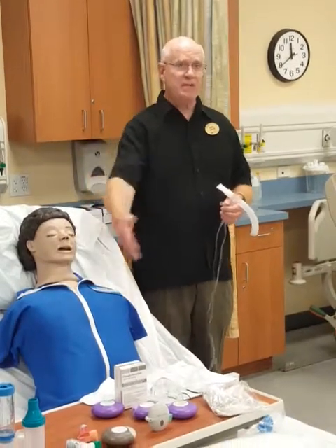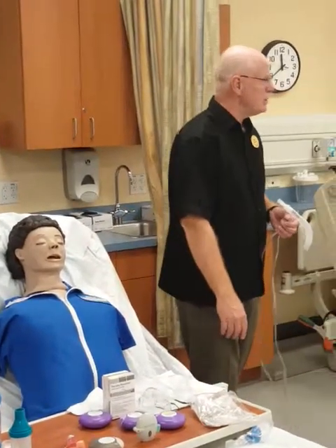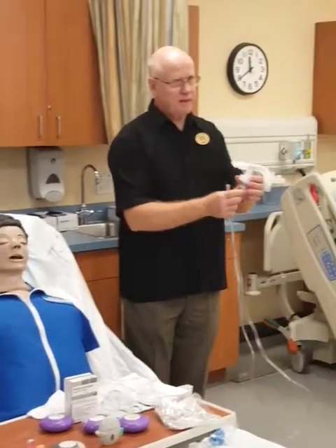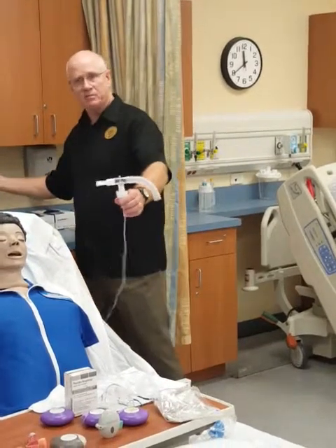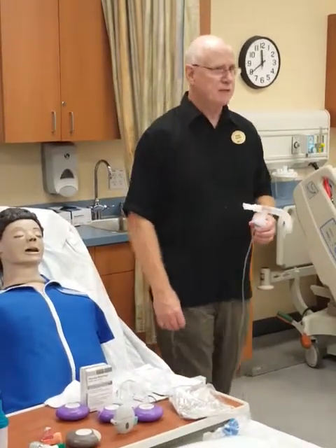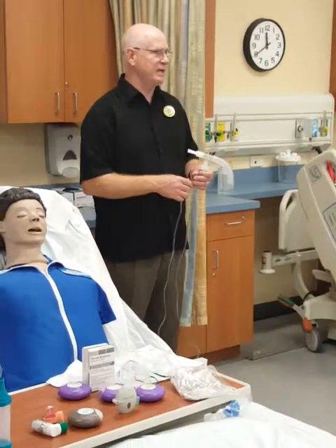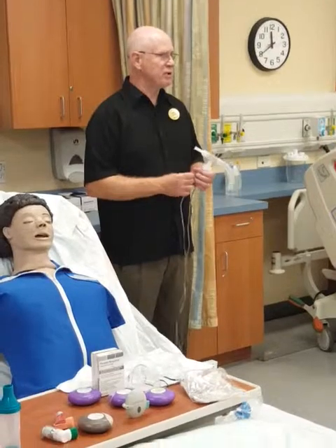Let's say a patient has an air entrainment mask at 40% — that means they need quite a bit of oxygen, 40% is a significant amount. You're going to be taking that off of them. Well, this nebulizer delivers about 40% oxygen, so when you hook it up it delivers about 40% oxygen — it makes sense. You wouldn't think of giving it with air for a patient who's already getting oxygen at a significant concentration.